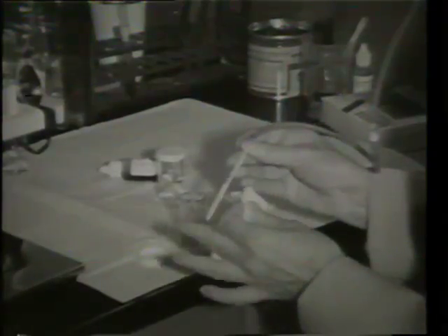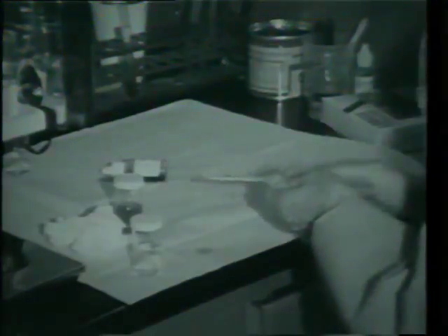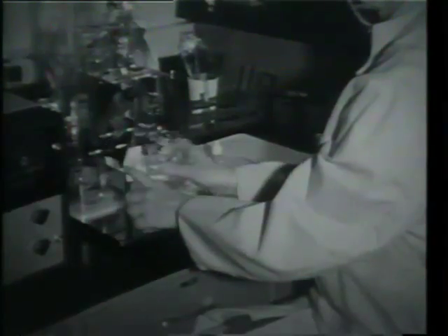She will further dilute this specimen in order to do the red blood cell count. A fresh pipette is used, taking out a different volume of blood. She will now clean out the machine with distilled water to make sure that there are no particles residual in the aperture or between the electrodes. She is setting the machine for the impulse that will detect the red blood cells.